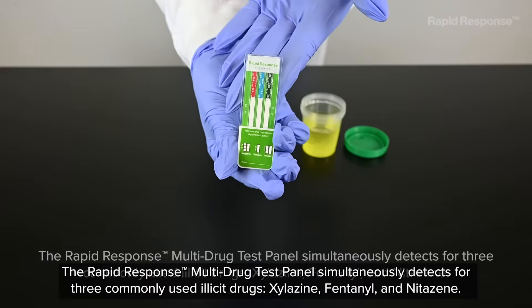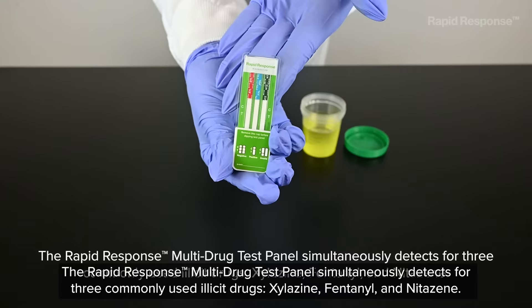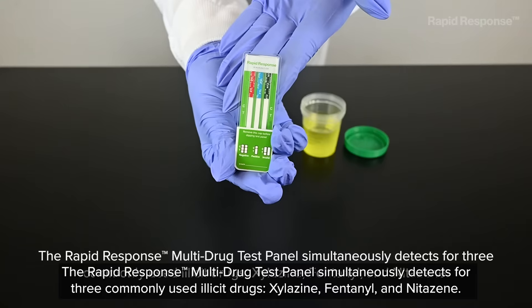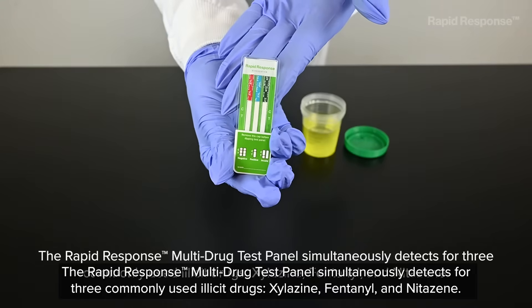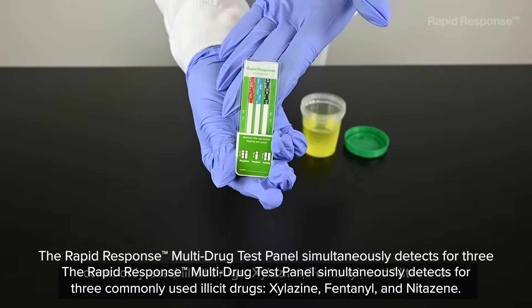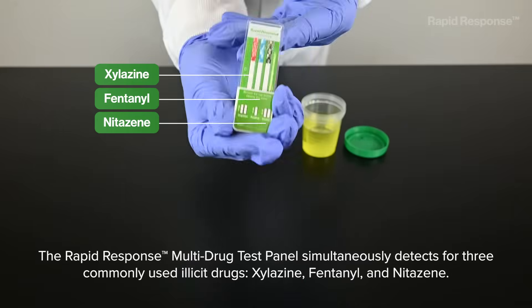The rapid response multi-drug test panel simultaneously detects for three commonly used illicit drugs: xylazine, fentanyl, and nitazine.